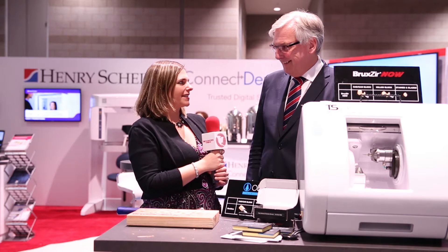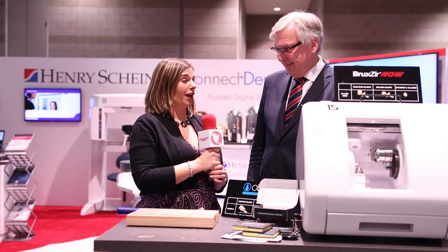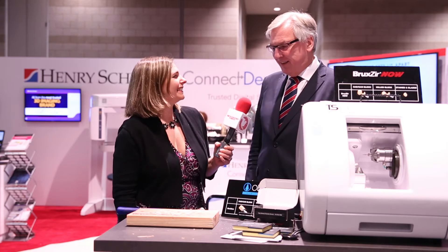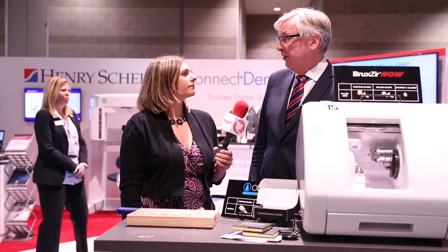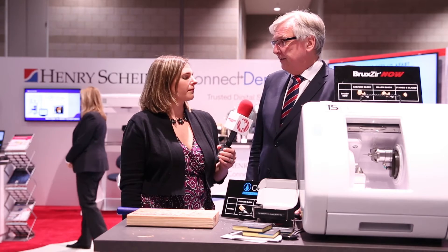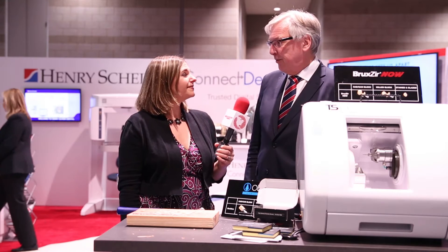So it can be done quickly. And what we're going to get to here is that it's incredibly strong and durable. Can you speak to that? It's very strong and durable. Zirconia is a very strong material. It is very popular in the U.S. and the whole world. It's an easy product to work with, and it's very good for patients — something we are very happy with.